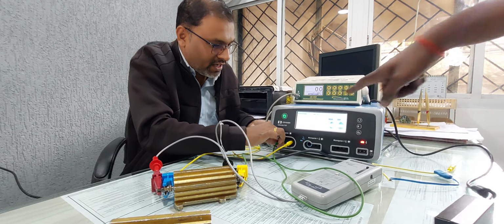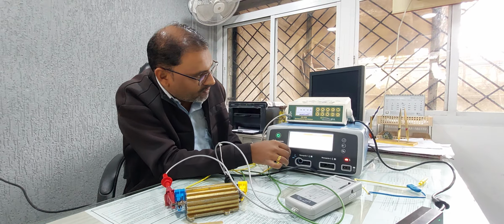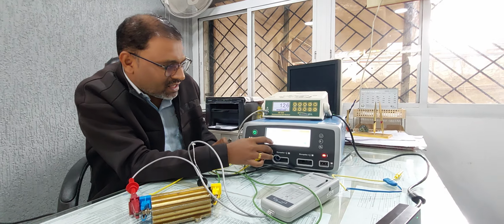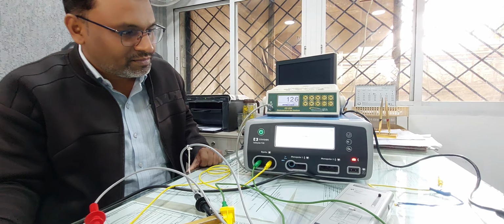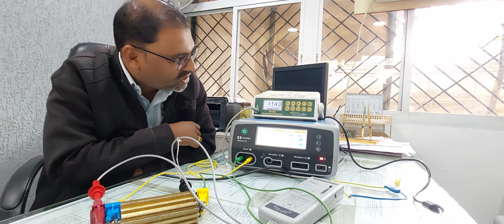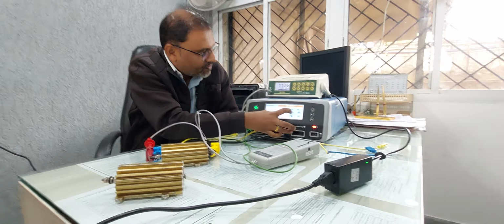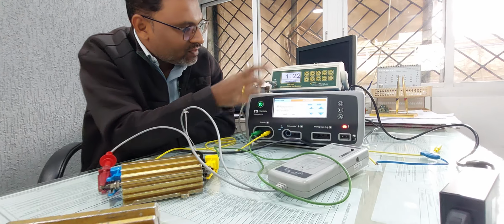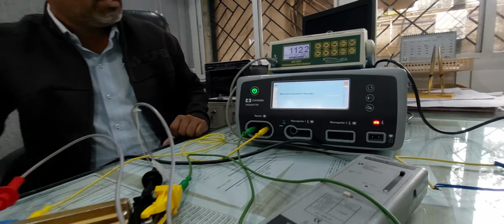I think it is not connected properly. See, it's 12 volt and here it is 12.6. That means it is okay. Just accept it. This value has to be taken by the machine. What is the next target value? It is 112. Just press start. Here it is 114. We have to adjust to 112. Right? Once these two values match, press accept. It gets accepted.